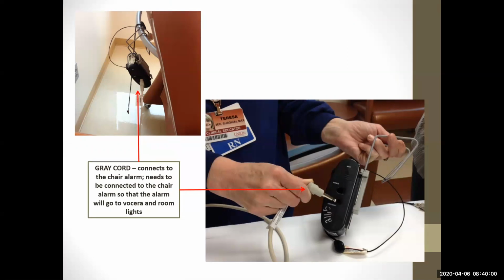Now, when we were talking about the call panel with the call alarm, there is actually a cord that plugs into it that can be hooked up to this fall alarm. And we have these in a couple of the rooms. What we did is we recycled these from the units. So say you're working evening shift in X-ray and the patient is in the room and they're a fall risk.